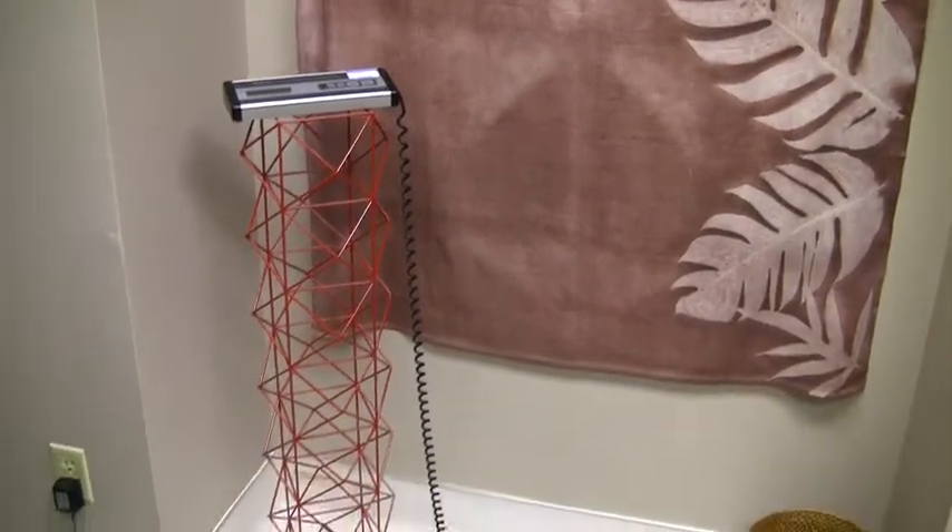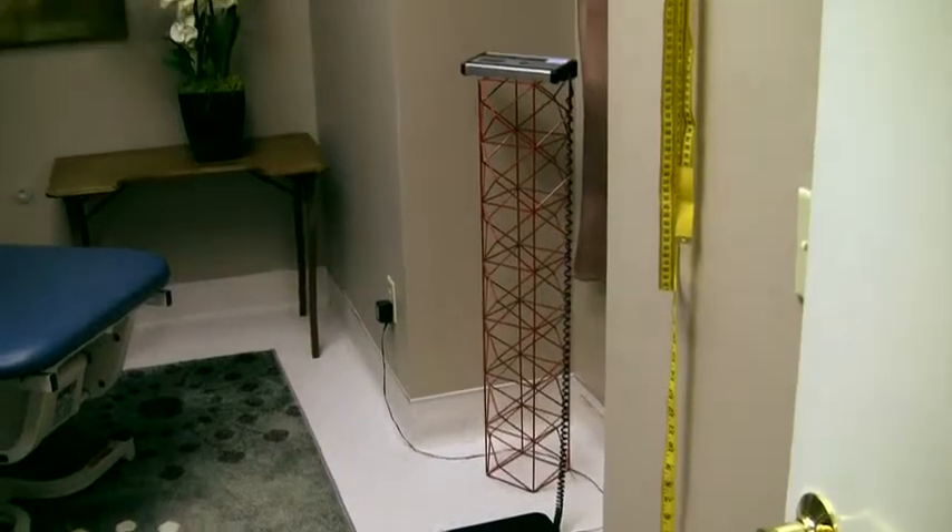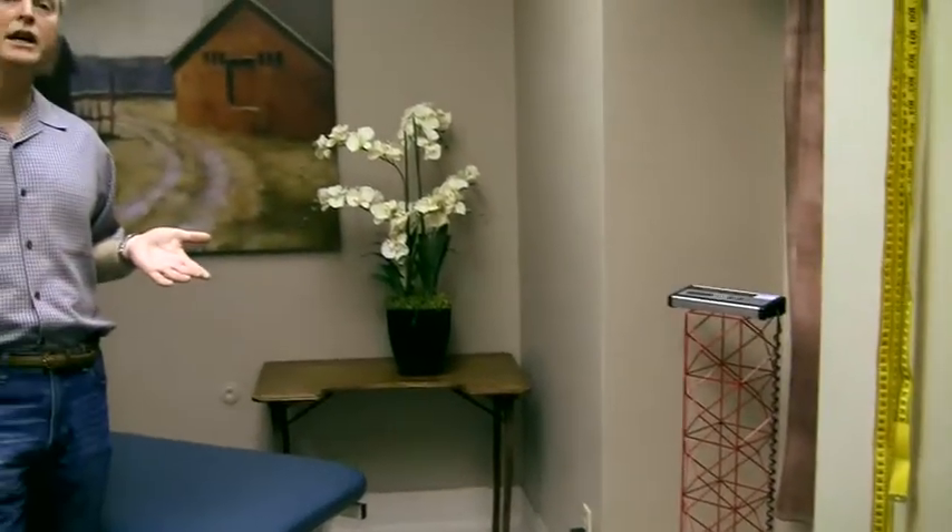There are some people that have a so-called healthy weight, but they have really a lot of visceral fat and not much in the way of muscle mass. And there are other people that are so-called overweight, but they really have more muscle and a modest amount of body fat. So Bioelectric Impedance Analysis is a way of getting at that.